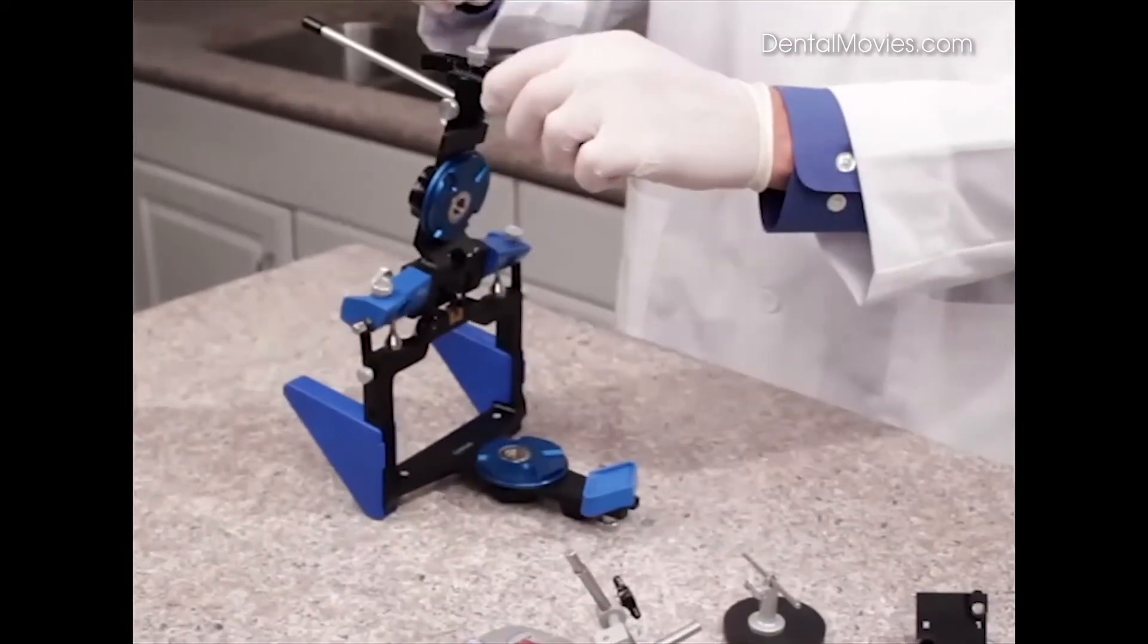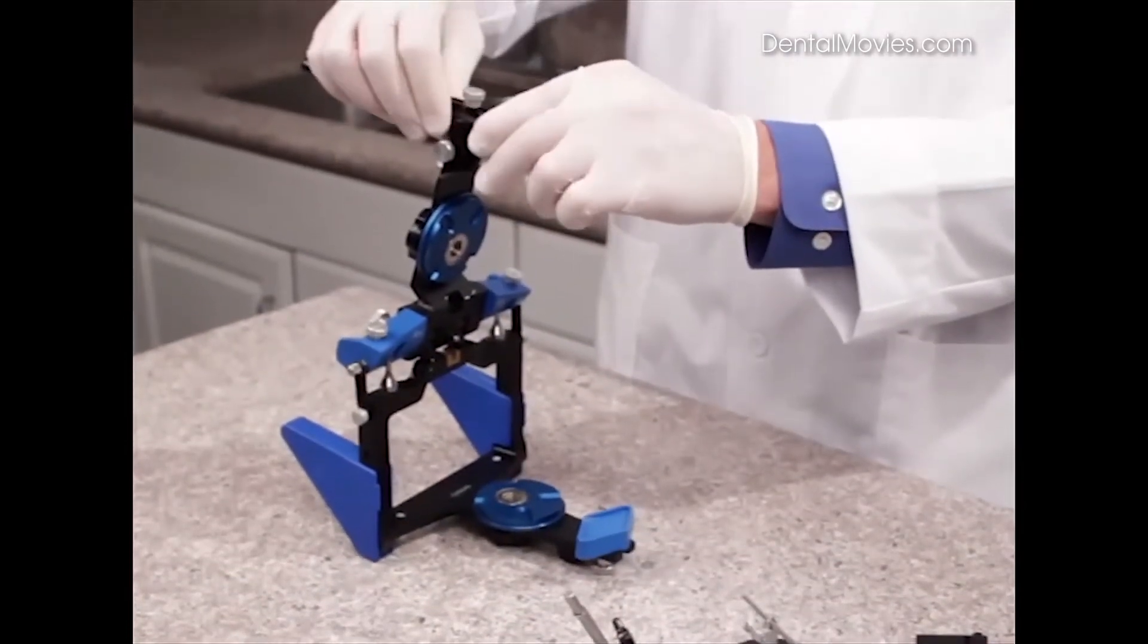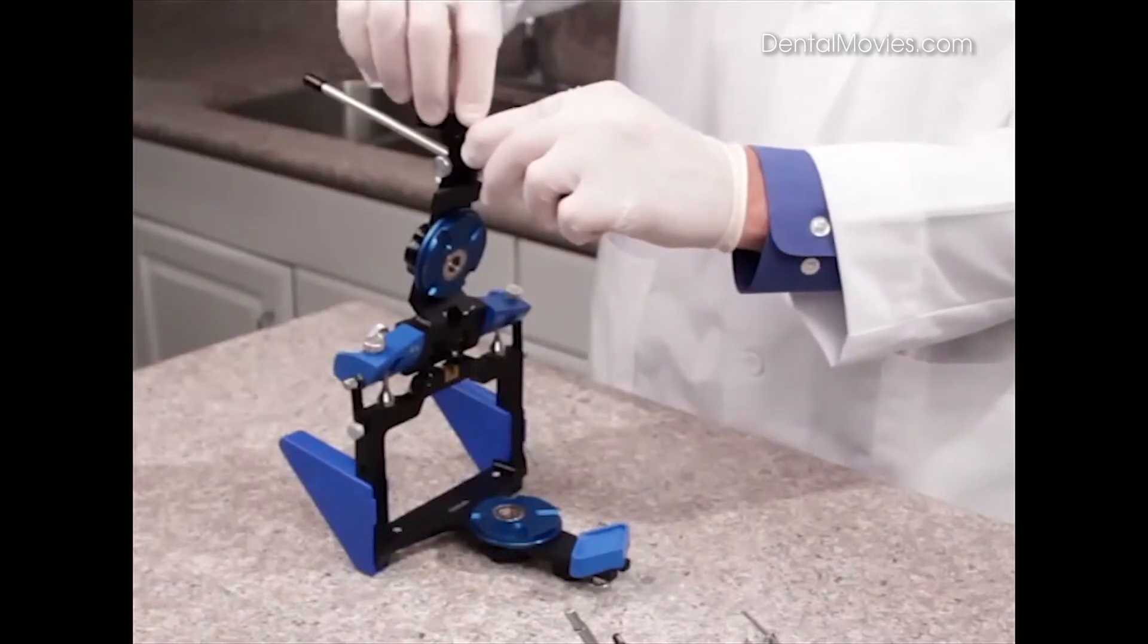And we do want to set our incisal pin at zero, so I'm going to adjust this to the zero mark and tighten it in place.